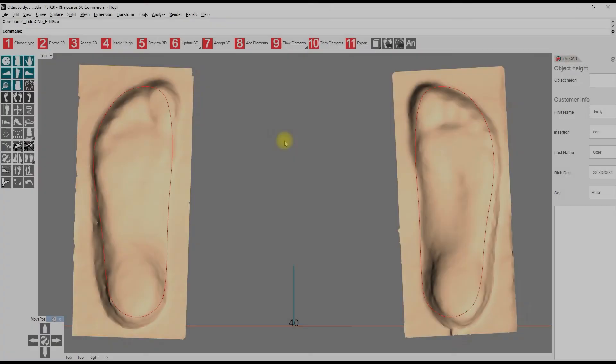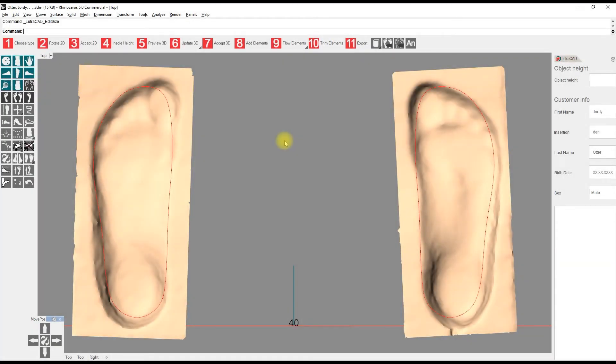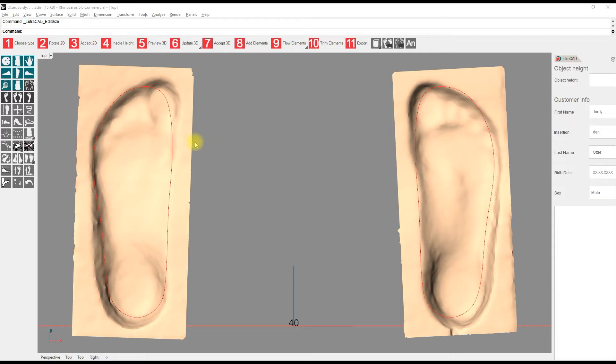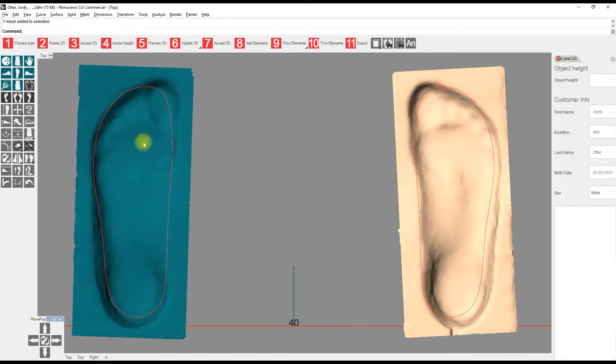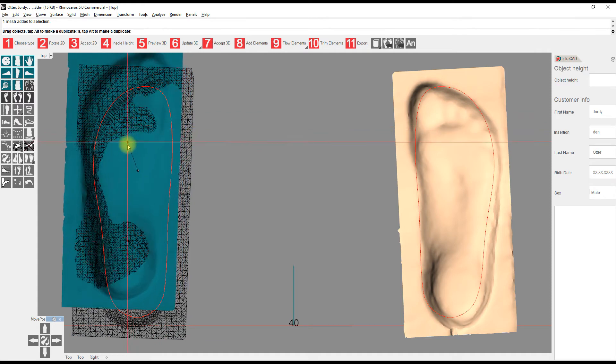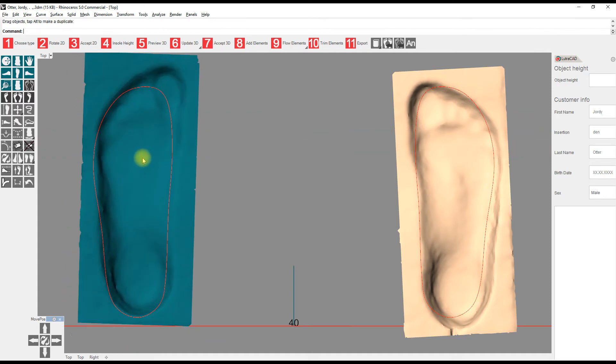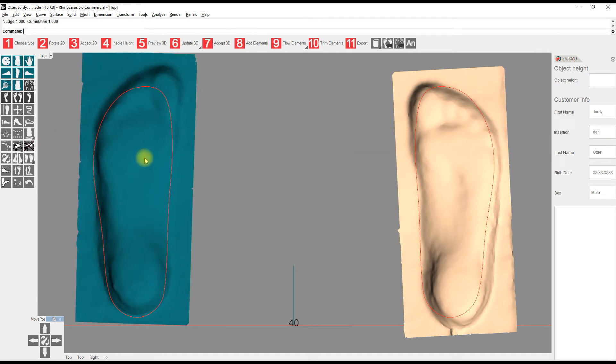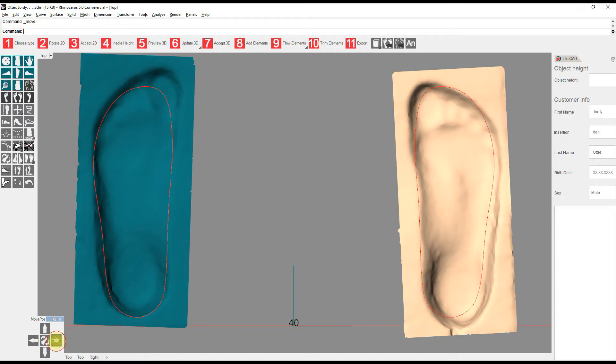Position the 3D scan inside the red pattern. To do this, first move the scan to the right position by selecting the scan with the left mouse button and move it by drag and drop, arrow keys on the keyboard, or with the arrows on the toolbar on the bottom left.